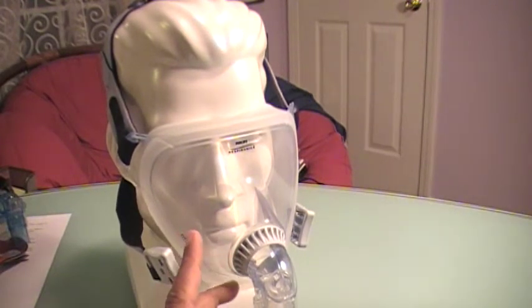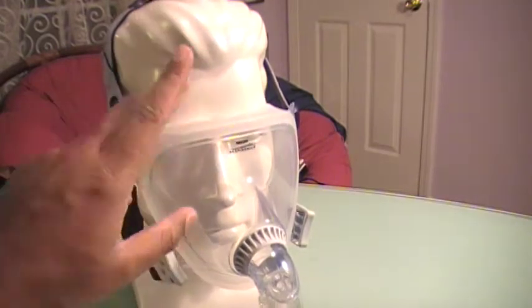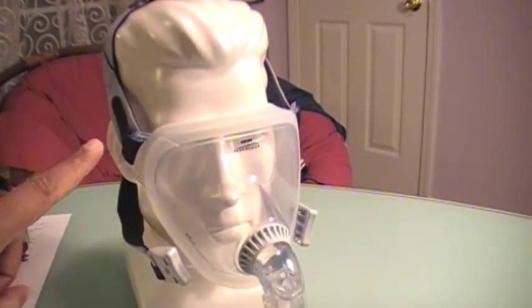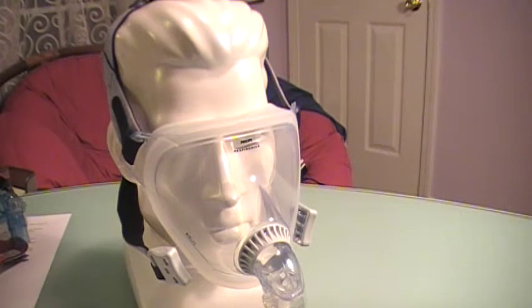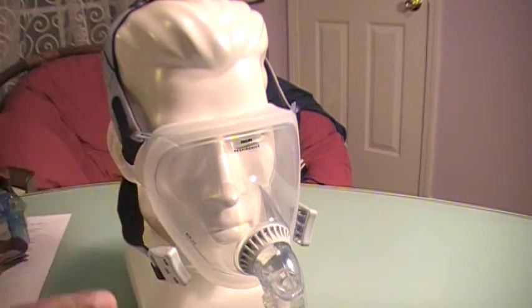Ironically, this mask is appropriate for pediatrics. The small size mask — this comes in small and large — is good for someone as young as seven years old, just as long as they weigh at least 40 pounds or 20 kilograms. For adults, you can use small or large. The large size, according to the manufacturer, fits most people, but you must weigh at least 66 pounds or 30 kilograms.